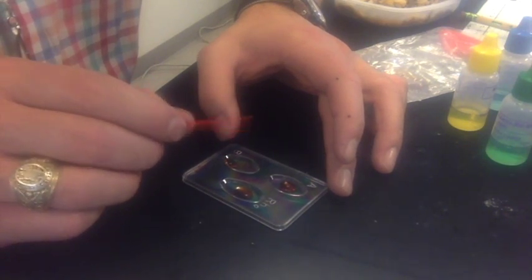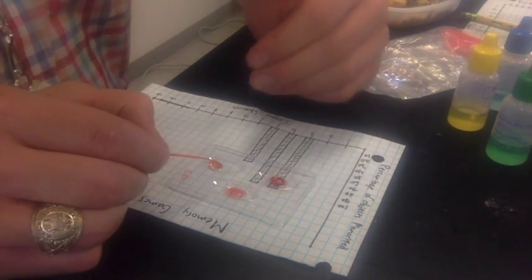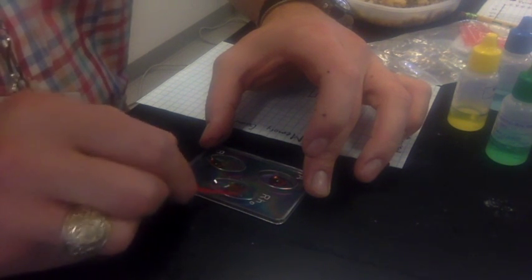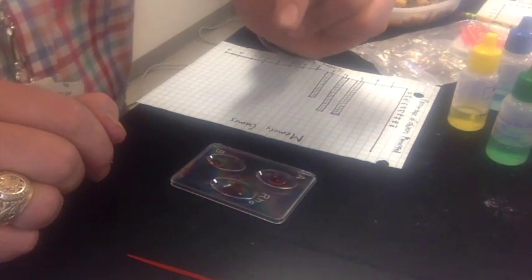Or what you can do is you can put your blood typing tray on a piece of paper. If you can still read through the liquid, it's a negative test. If it is cloudy and you can't read what's underneath it, that's a positive test. Now I'll grab my third toothpick and test the RH. 15, 20 seconds. And yet again, there seems to be no cloudiness, no agglutination, so it is a negative test for all 3. That means we have an O negative.